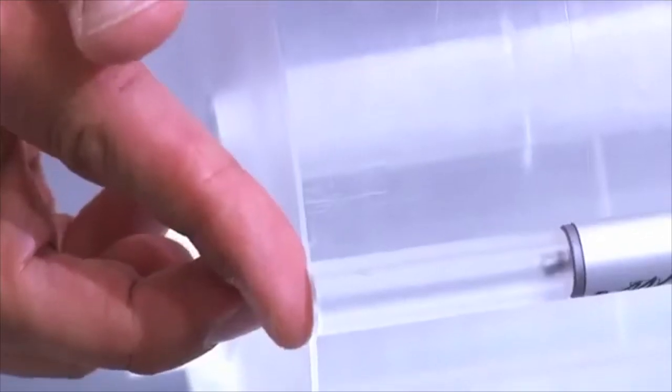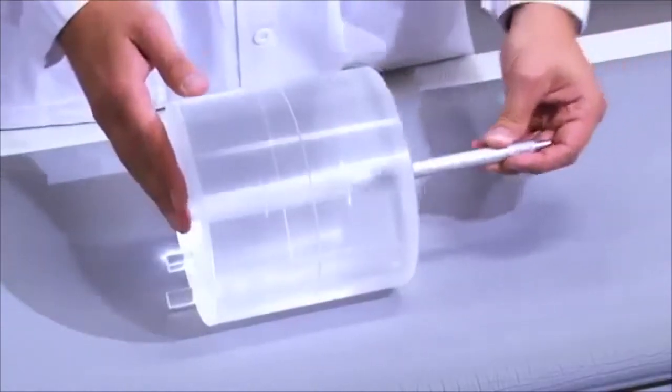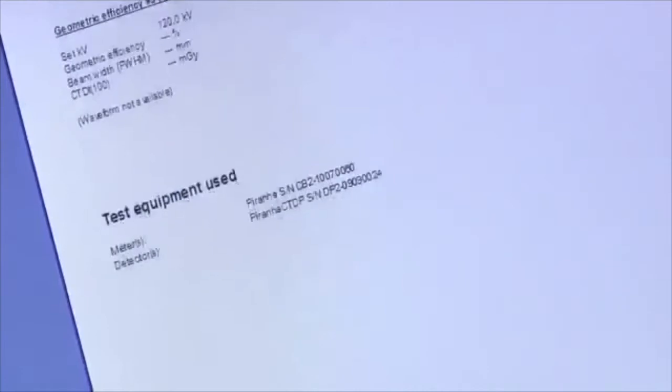The variable length allows the probe to fit into various different CT dose index phantoms. When you've finished, your customized report is just a click away.